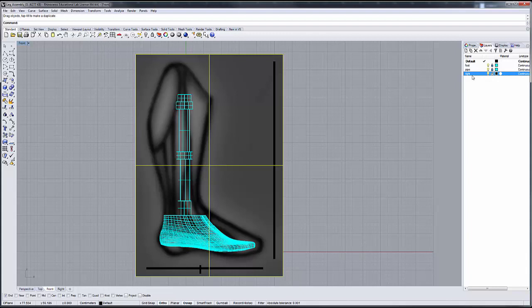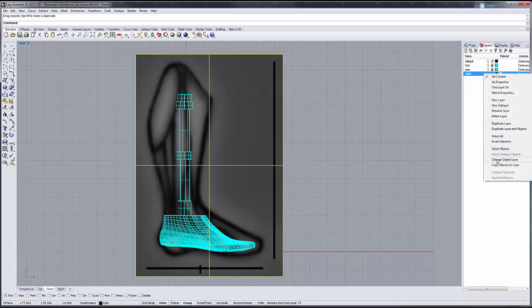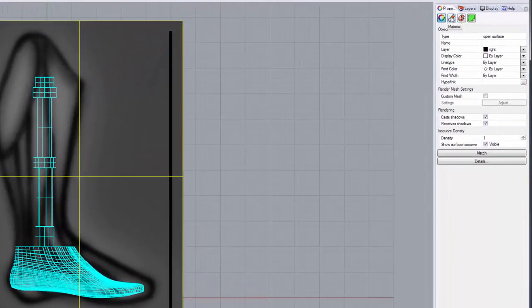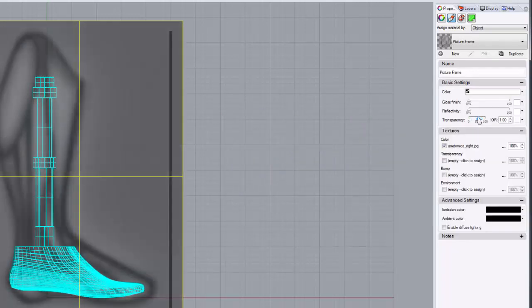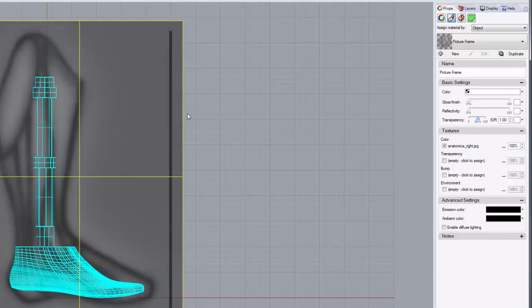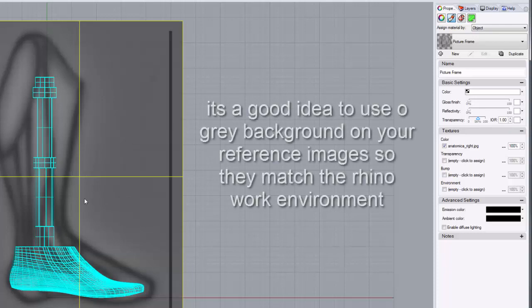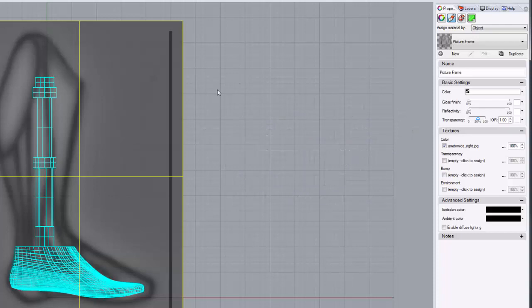Even though it conforms to the front window, I'll call it right. I'm going to select that and change its object layer, then go up into the properties and into the material node. Under the basic tab, one of our options is transparency. I'm going to make that about 50% transparent so that I can see my design and my grid underneath. I made my drawing about 50% gray because that matches the Rhino environment — you can actually take a color sample from Rhino and bring it into Photoshop so your work background and Rhino background match up, giving you a nice match. And if you make it transparent, you'll be able to see your grid elements through your design.